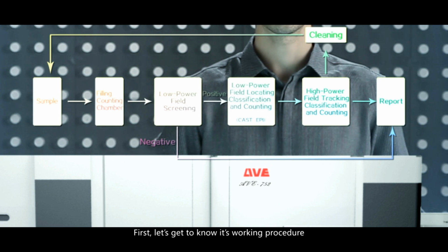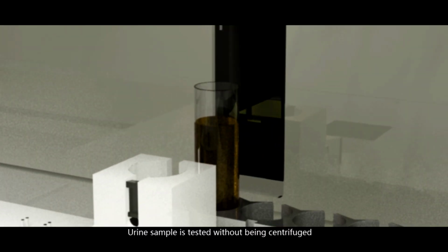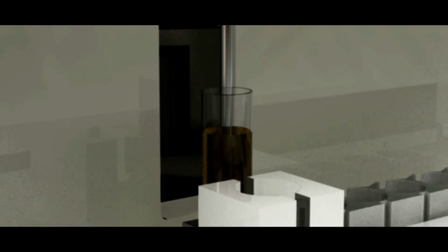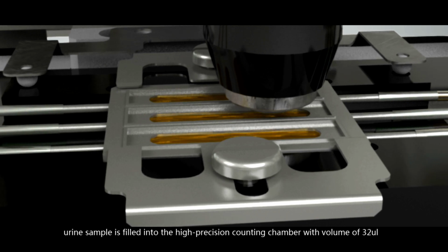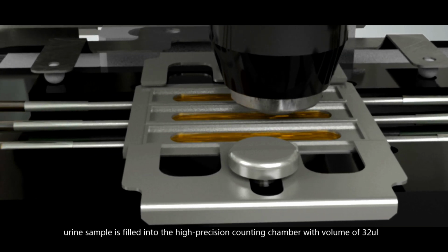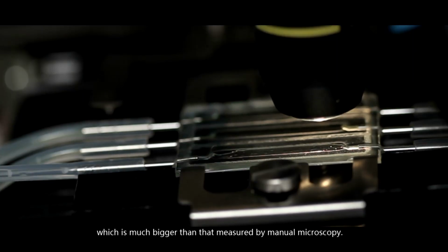First, let's get to know its working procedure. This analyzer completely follows the procedure of manual urine microscopy. Urine sample is tested without being centrifuged. Fully homogenized by the probe, urine sample is filled into the high-precision counting chamber with volume of 32 microliters, which is much bigger than that measured by manual microscopy.